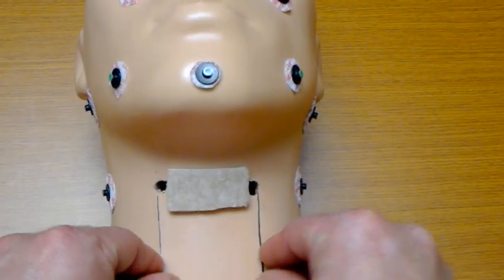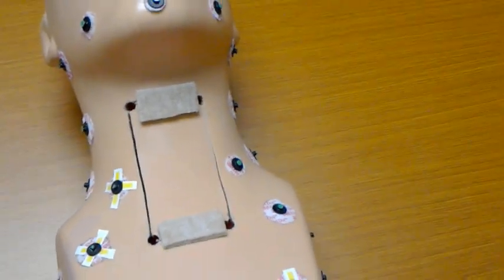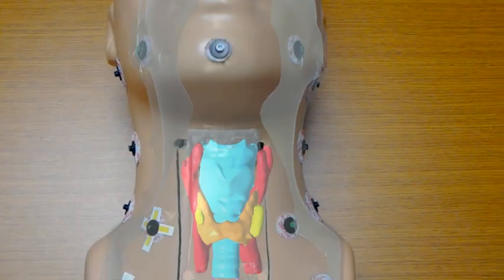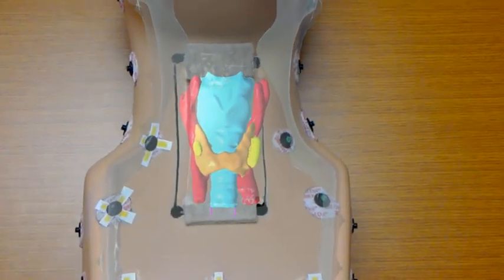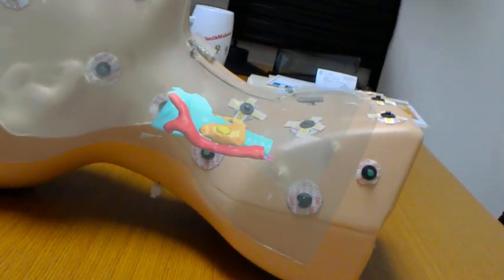Now the HoloLens lets us use voice commands, which obviously would be quite helpful in the operating room. So we'll go ahead and turn our model on. All on. And then there you can see the structures virtually that we just saw anatomically. And it's a 3-dimensional representation in this, I guess you'd say, augmented reality. And so there's an overlay of imagery on top of our physical model.